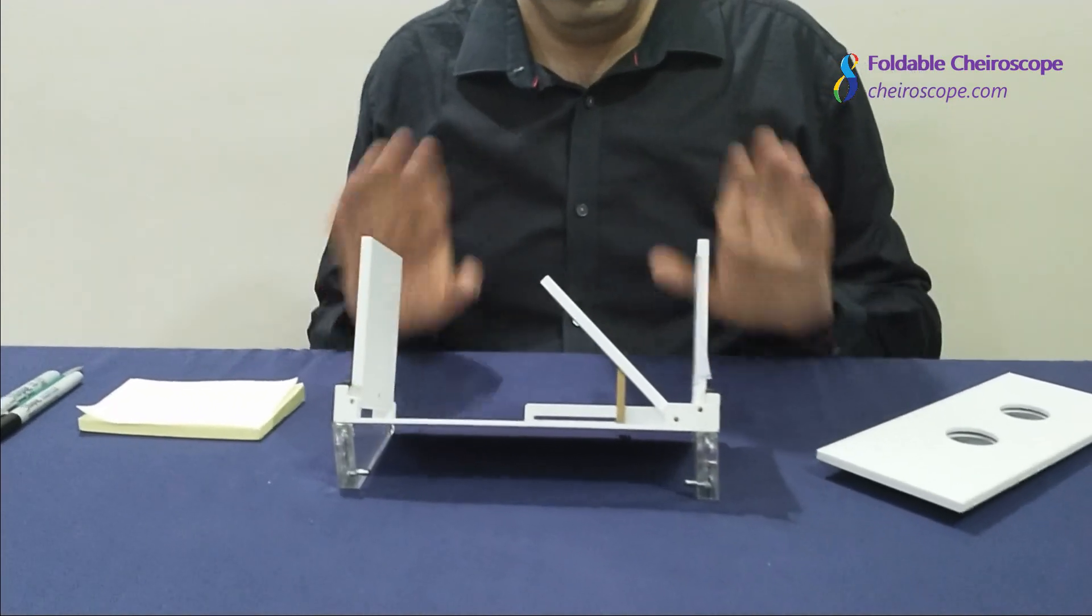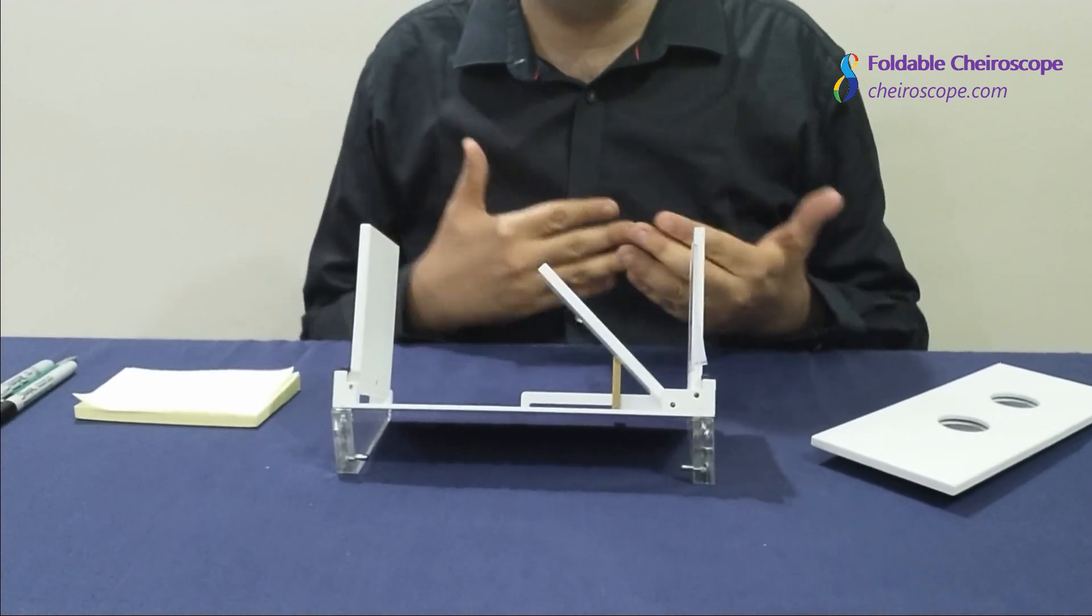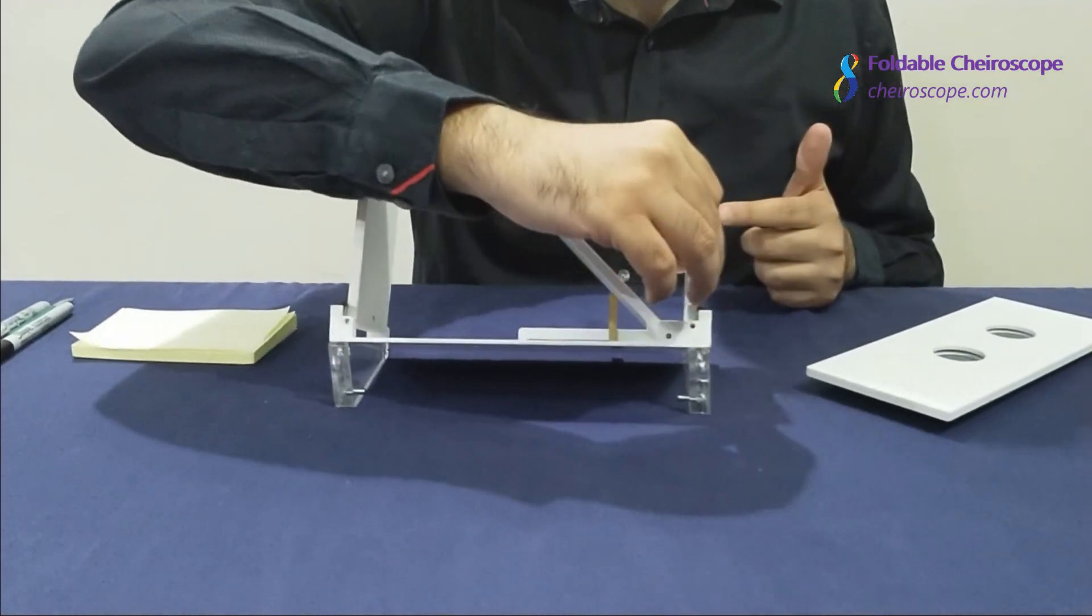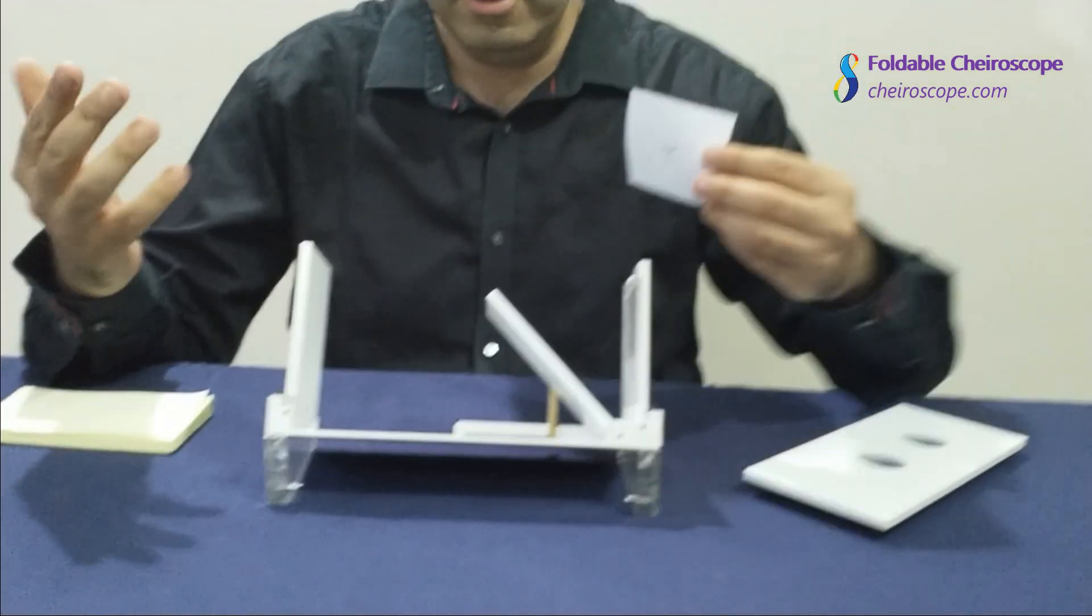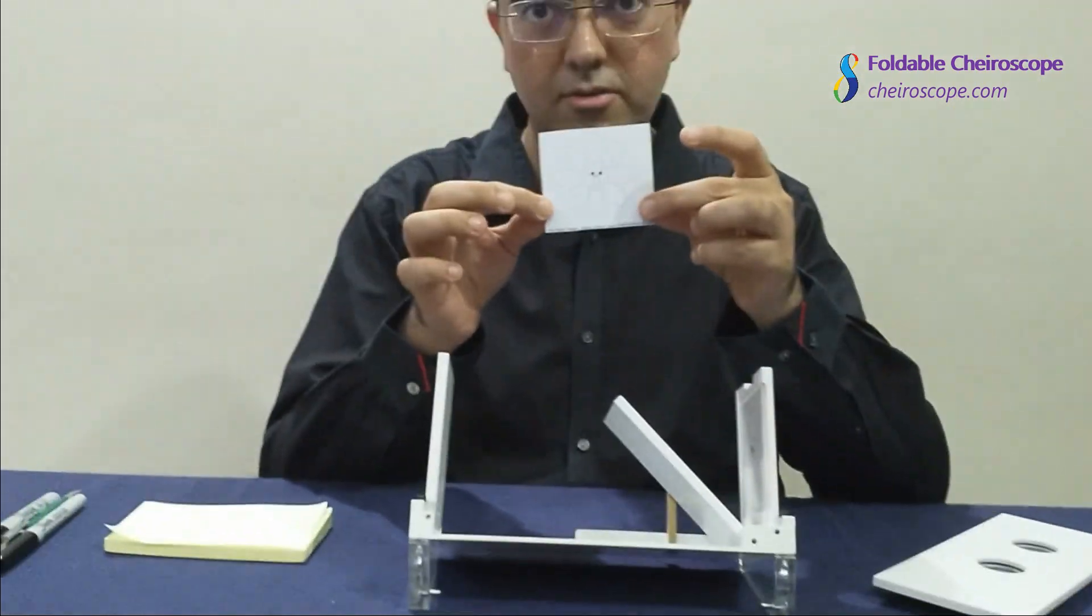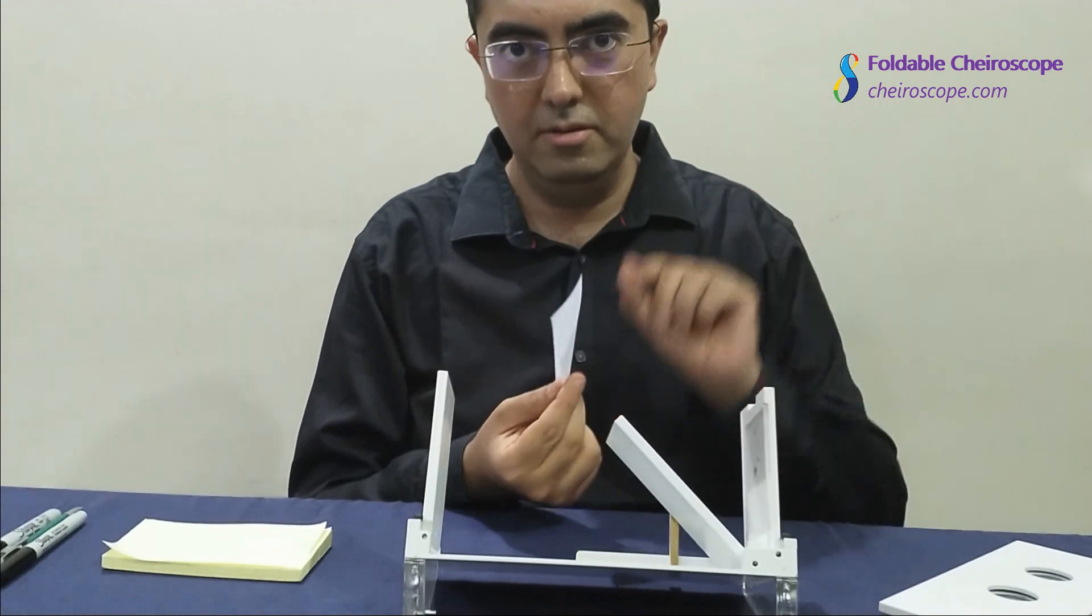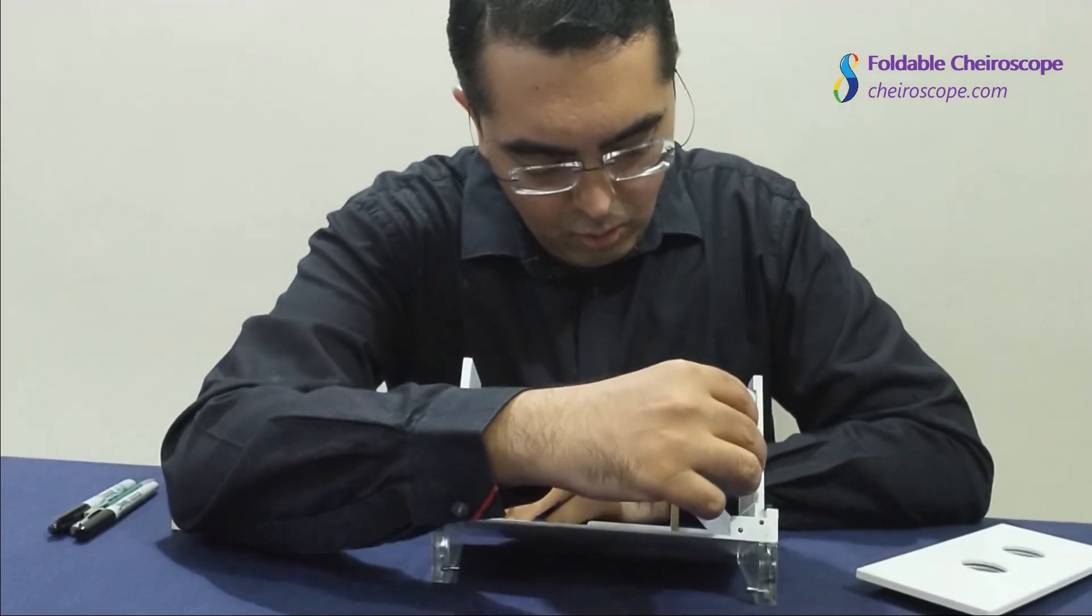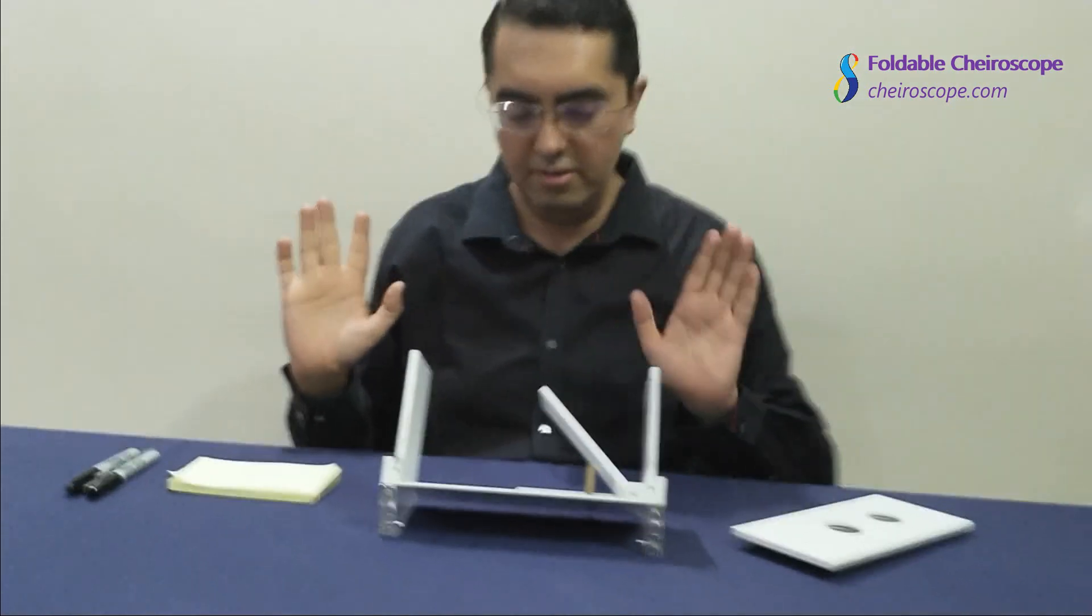For this particular exercise, we are going to use this image. This is a very simple image that the patient has to sketch on his or her writing pad. Gently slide this image in the slot over here just like this, and it fits nice and properly.